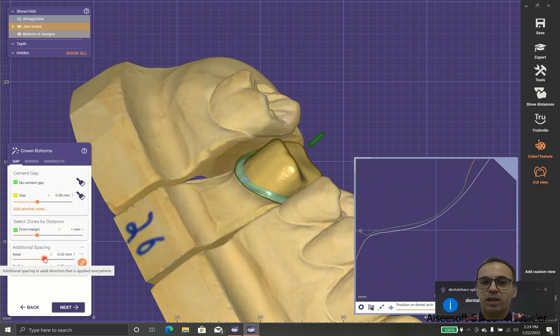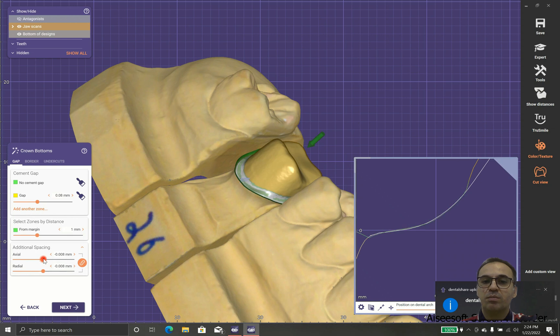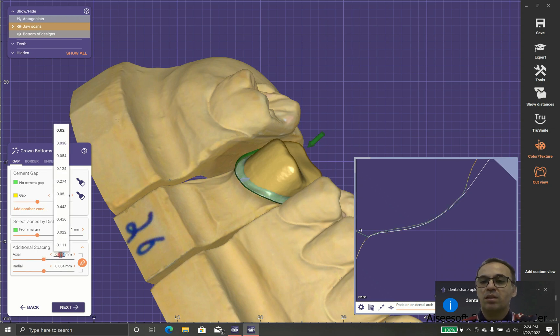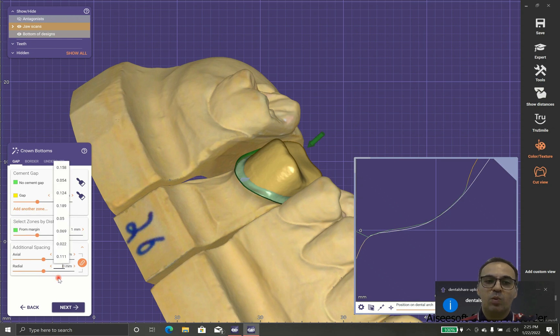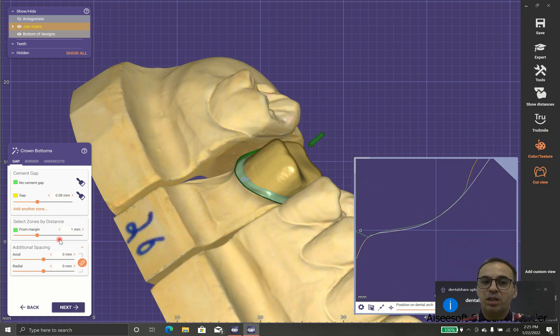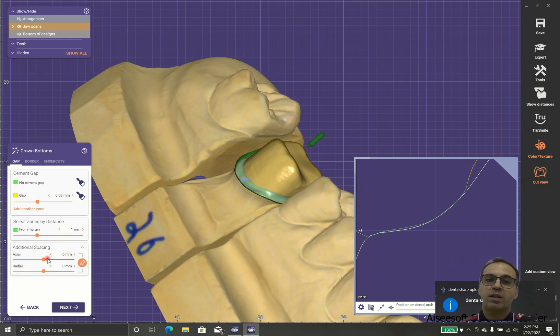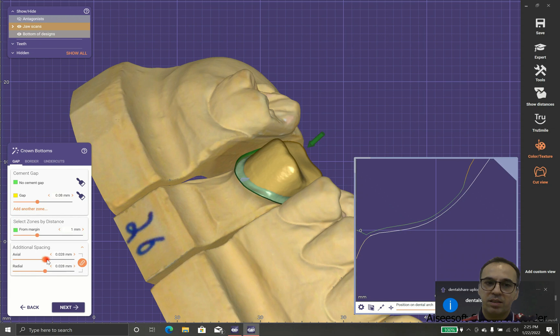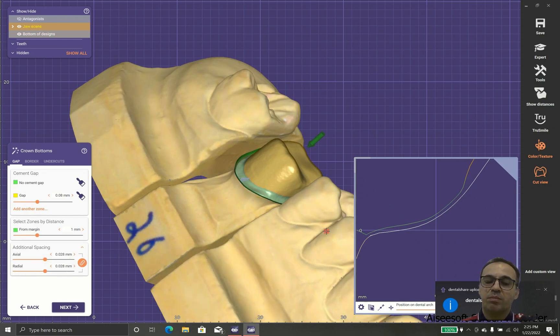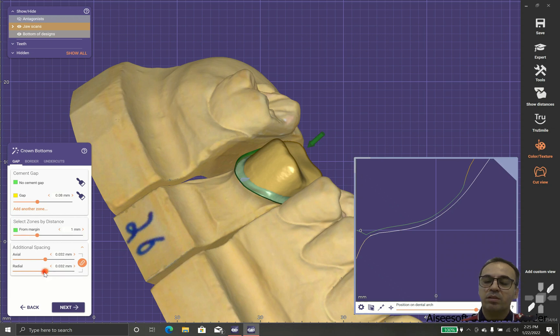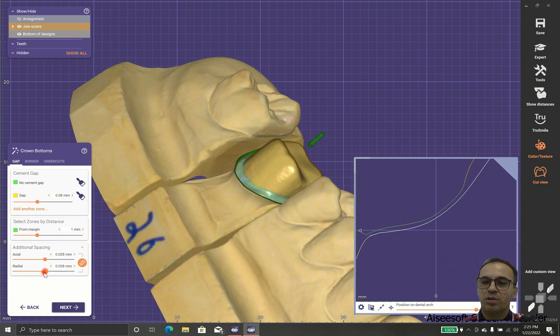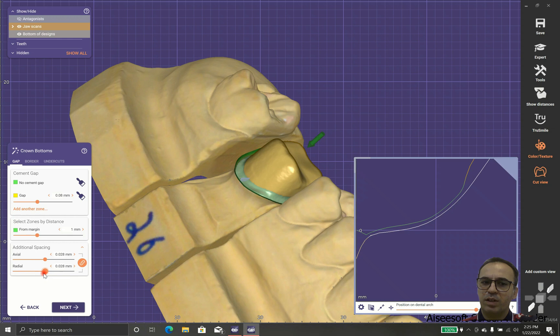In this cut you can see the green parts attached with small diameter of 0.02 or 20 microns space. Why did I add 20 microns? Because most of the cements have minimal thickness, so in case that we put it at zero it may result in the crown that doesn't sit as it should be. So I prefer 20 to 25 microns in this part.